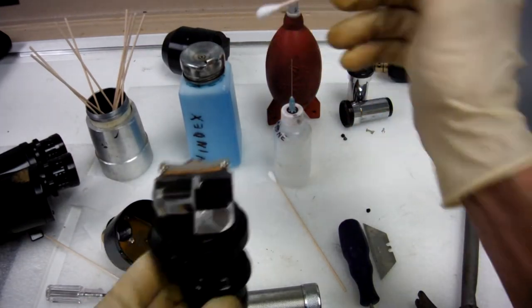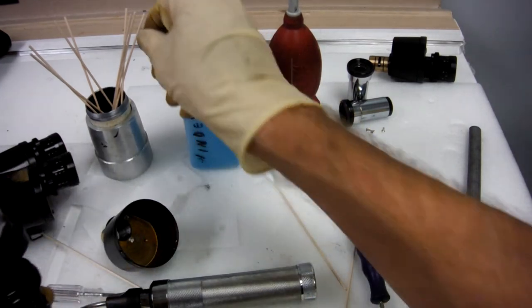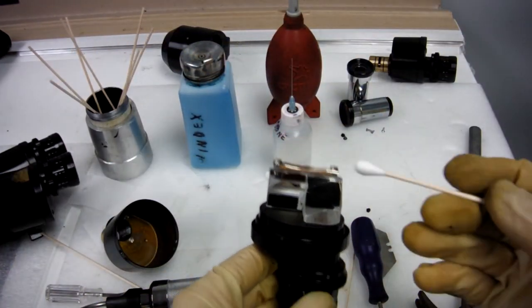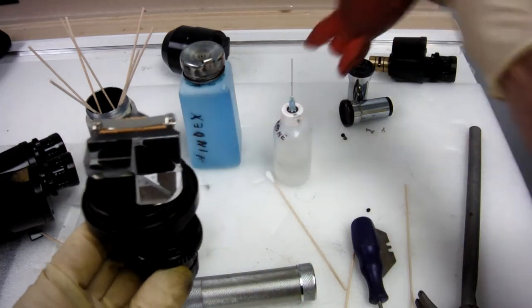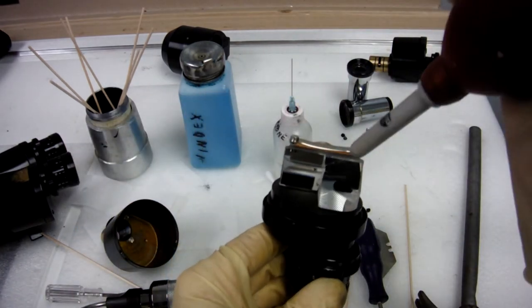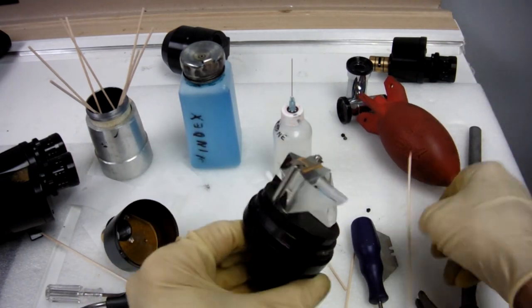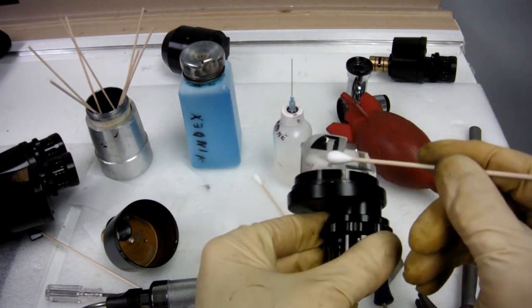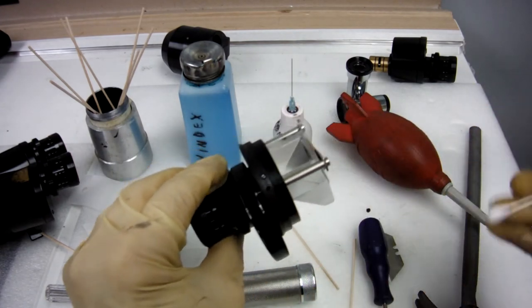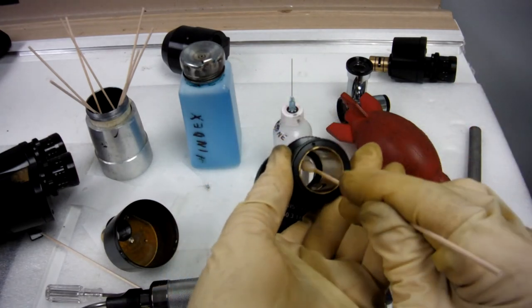As you're using Windex, clean, dry, and pull it out. Every single prism lens needs to be cleaned out, even here.